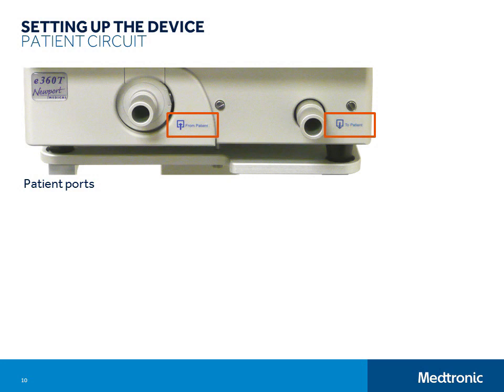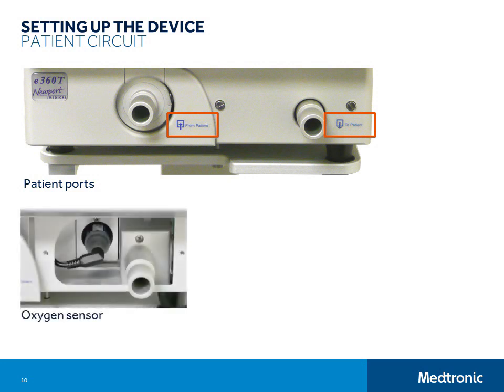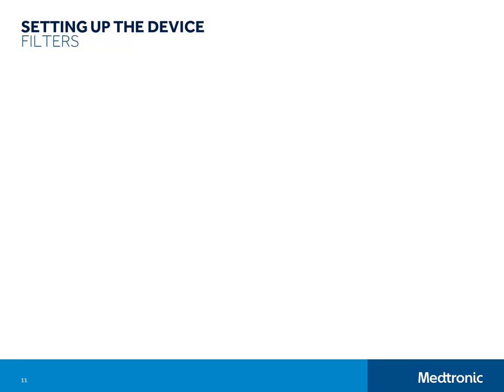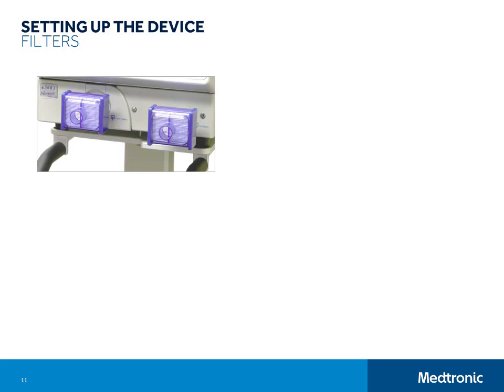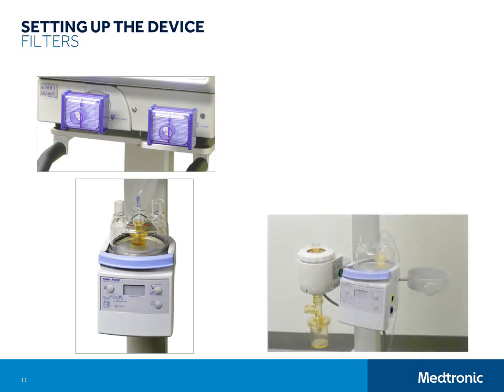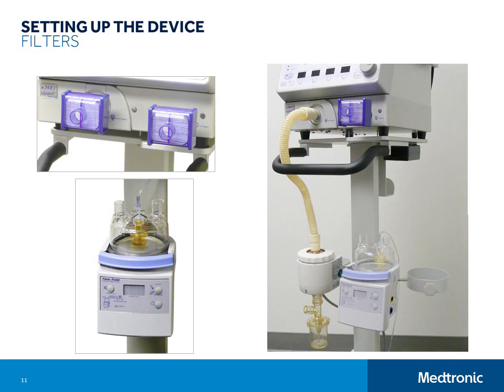The oxygen sensor is located just behind the 'to patient' port, and the exhalation valve and flow sensor are located just behind the 'from patient' port. Start your breathing circuit setup by attaching filters onto the 'to patient' and 'from patient' ports. If you are using a heated humidifier, attach it directly to the cart or compressor. If you are also using a heated expiratory filter system, you will need to use the T-bar to mount both the humidifier and the filter system. You won't need to attach a filter onto the 'from patient' port if you are planning to use the heated expiratory filter system. Instead, you will put an expiratory filter inside the heater assembly.